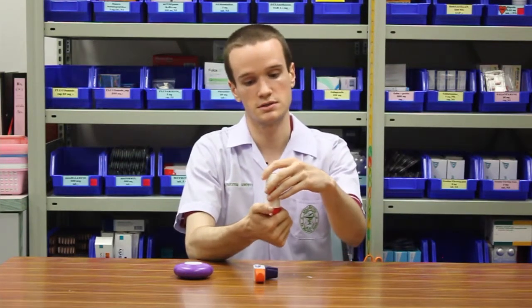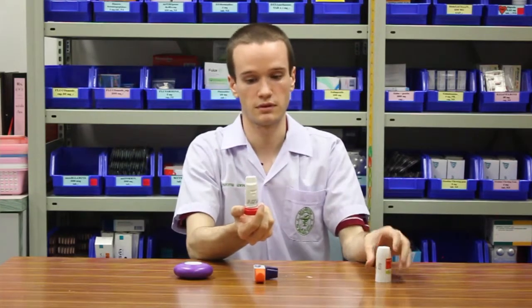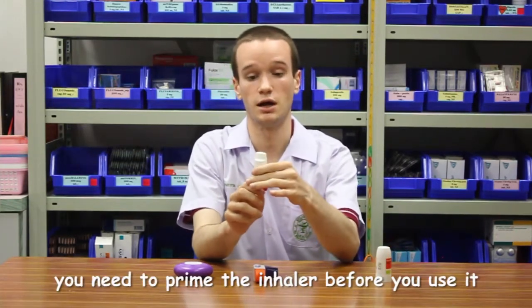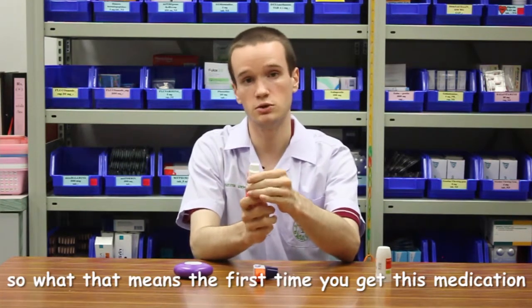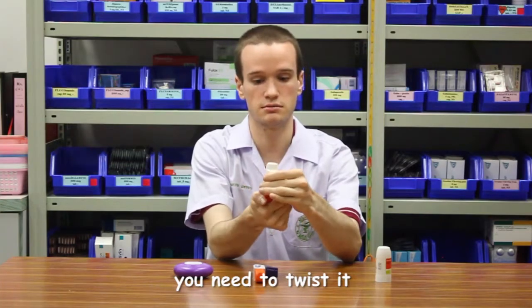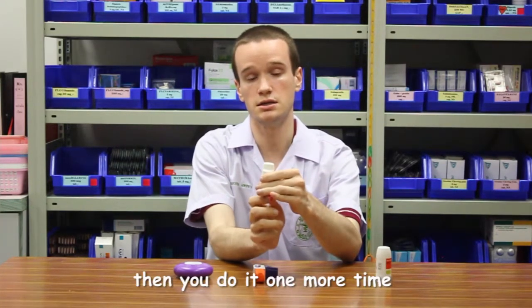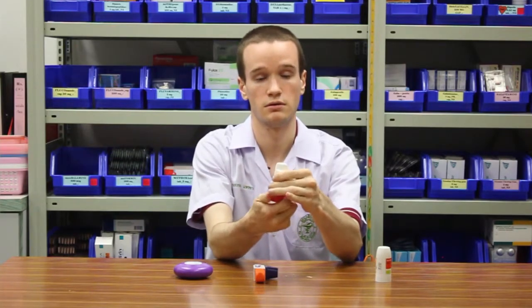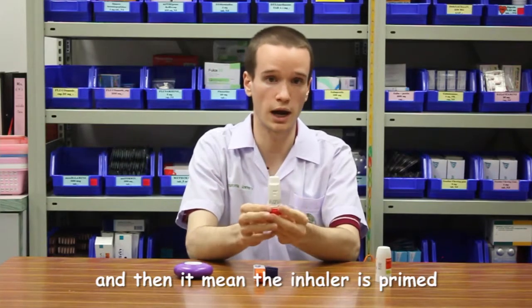So this one works like this. The first time you use this medication, you need to take off the cap, and you need to prime the inhaler before you use it. What that means is the first time you get this medication, you need to twist it to the right and then back, and you'll hear a click. Then you need to do it one more time until you hear it click, and that means that the inhaler is primed.